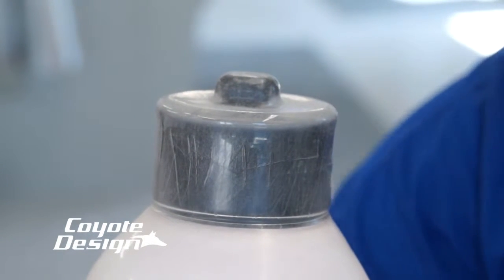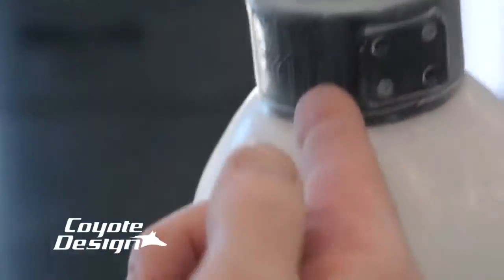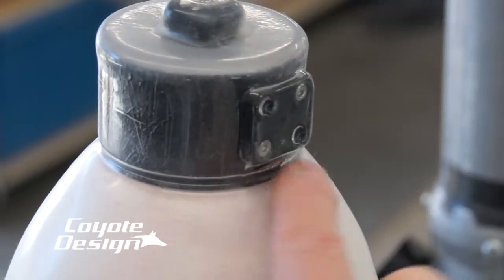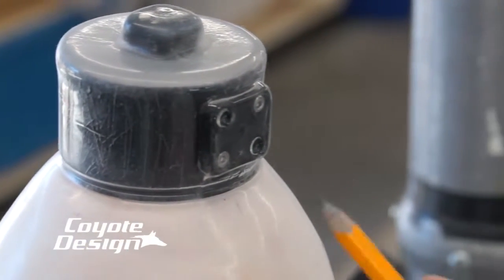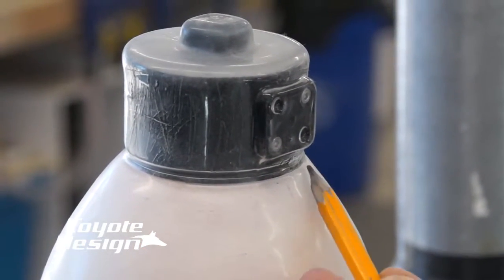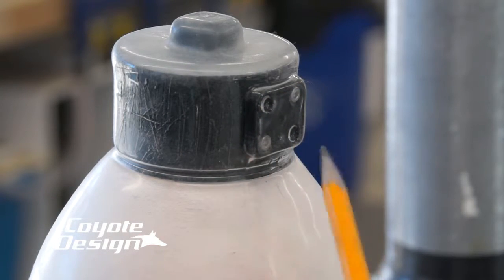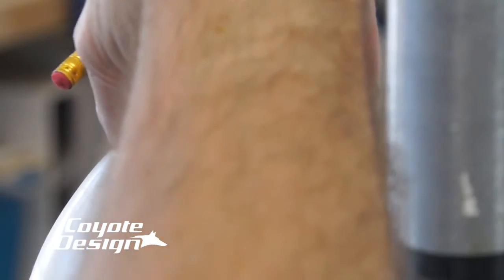Now that it's semi-cooled, I'm going to go ahead and just coax it a little bit. Right here, you can see how nice this drew from the tooling piece around it. And then right here — this is a real key with our lock, making sure you get a seal through this area. This is the easiest area, I think would be the correct term, to lose vacuum. It's right through here. Because it's such a tight area where the lever release is, to where your plastic or even a lamination is at, that spot is always highly likely to give you a problem. But you can see, using the nylon underneath here, that drew in really nice — a really nice piece around here.